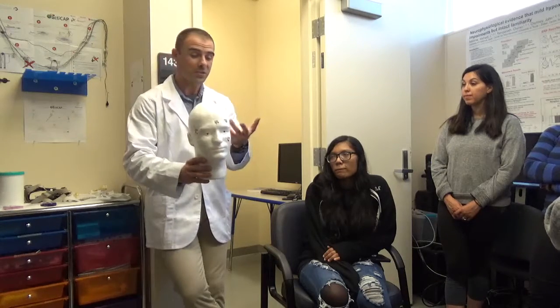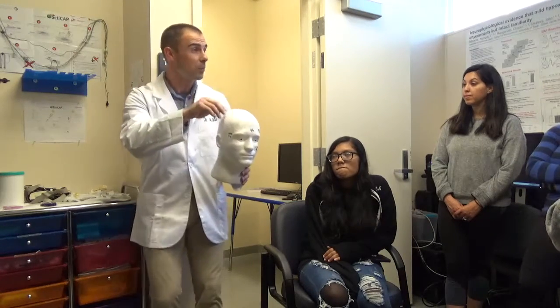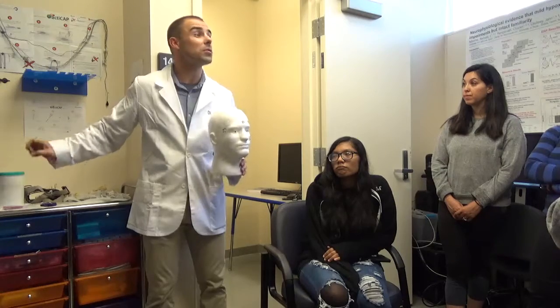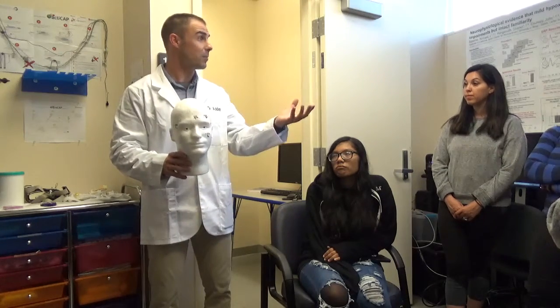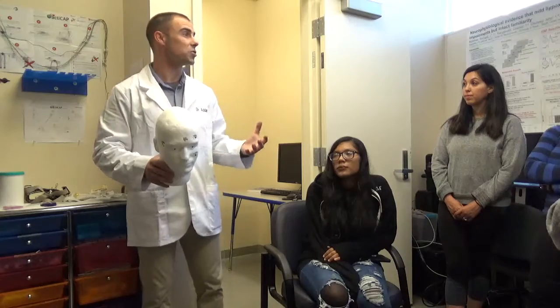But our brain signals have got to jump from the brain through the skull, through the meninges, then the scalp, then through the hair. And we talked about how these electrodes themselves don't even penetrate the skin, they barely even rest on the skin. So that's a big journey that our electrical signals need to make. And there are barriers to the conductivity of that electrical signal. We call those barriers essentially impedance.